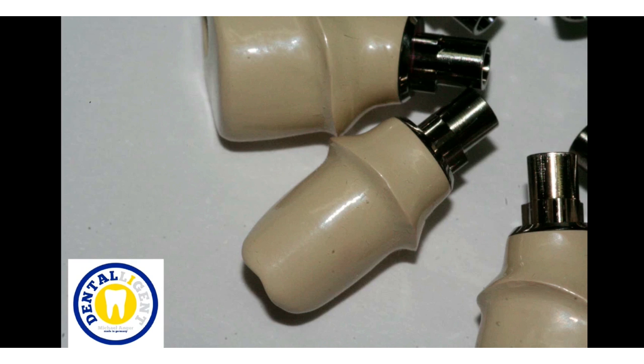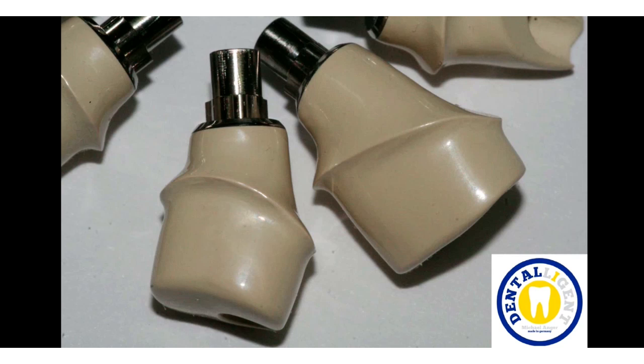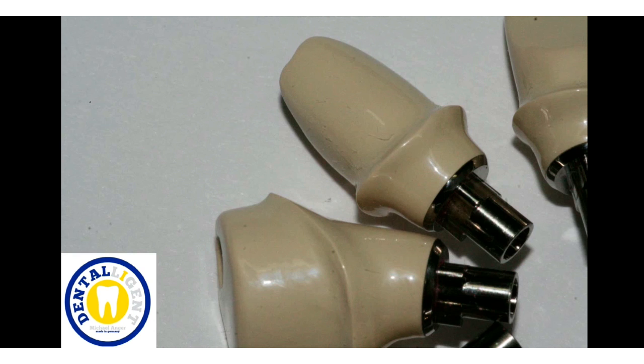The adhesive surfaces are very clean. This has been worked with a suitable bonder and a suitable adhesive. In these surfaces I expect a good adaptation of the gingiva, and due to the aesthetically impressive color, new possibilities in terms of application open up.